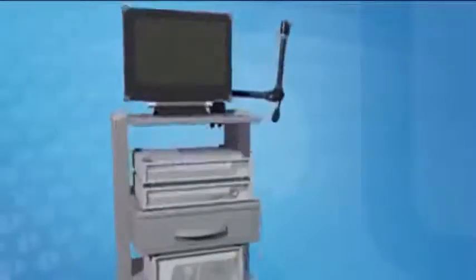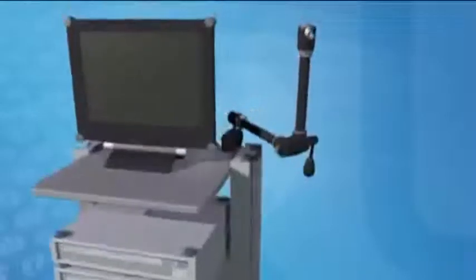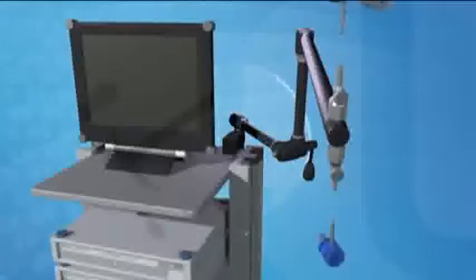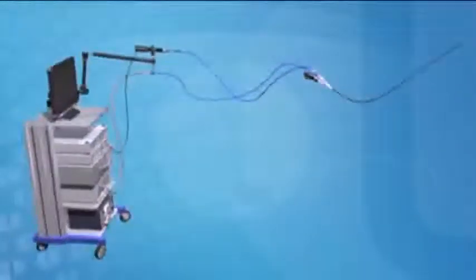The ergonomic polyarm allows the excess cables to remain off the sterile field, eliminating the need for sterilization between surgeries and allowing for better cord management during the procedure.